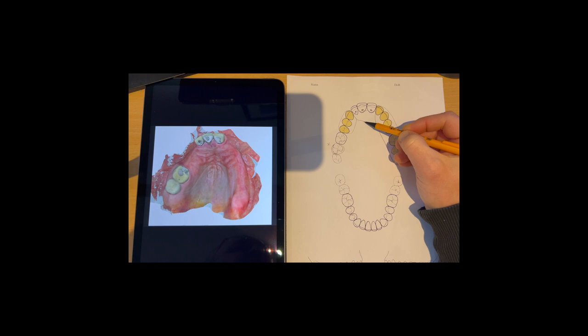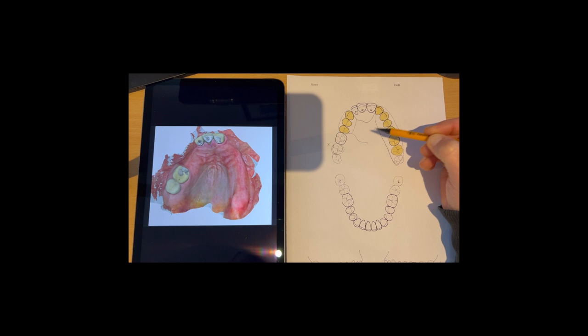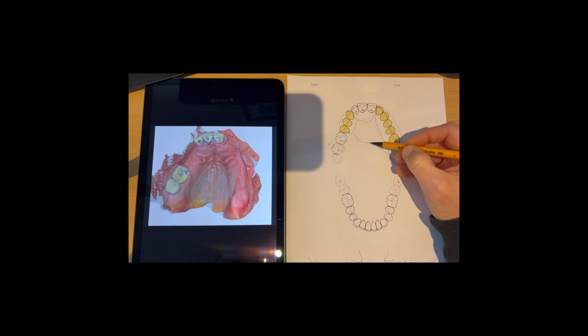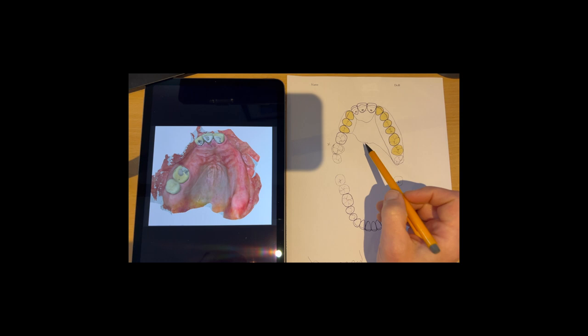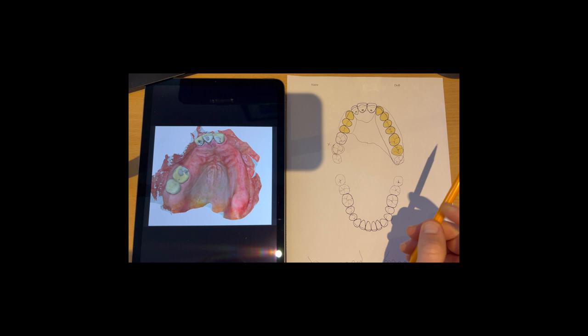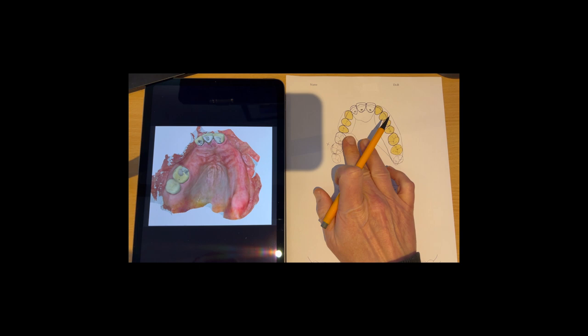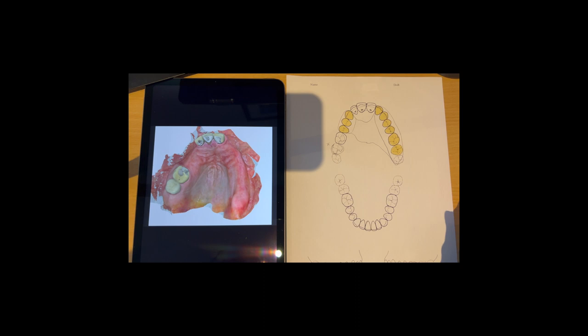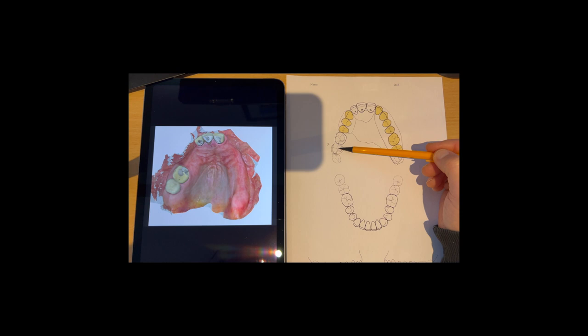So this is going to come down, so this is the midline here, and then bring that all the way back like that. So that's one way of doing it here where we're keeping it totally clear of those gingival margins. And then we can just do a complete denture in the future if we think that this is going to be converted totally into complete denture, should these teeth be lost in the future. Then a post dam could be added on instead, an acrylic post dam just across the back here.